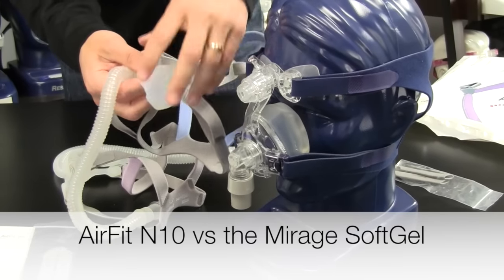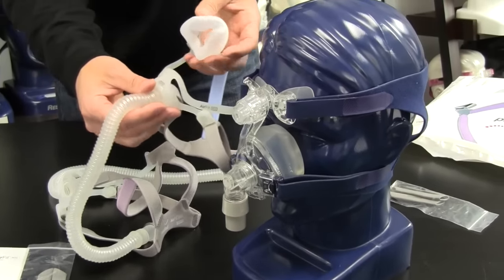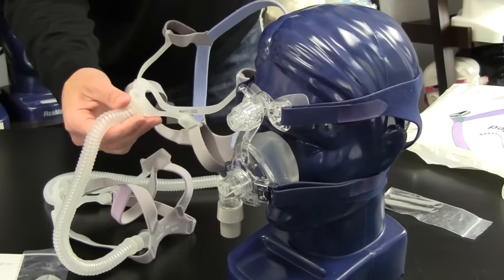This has a lot of hard plastic on it. This has almost none. This is a quieter design. Headgear is better. Clear field of vision.